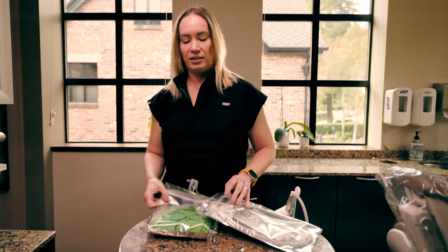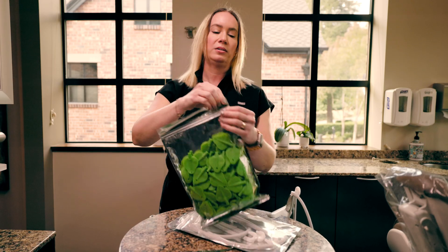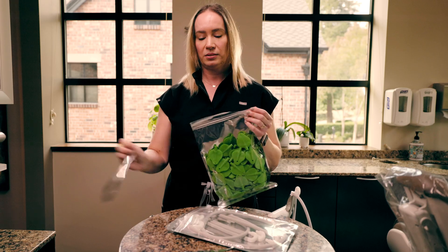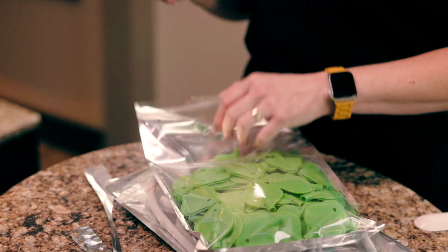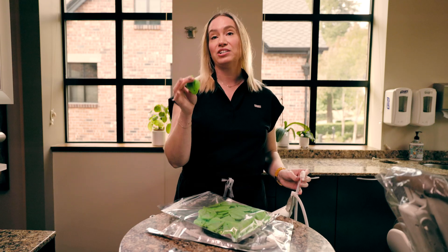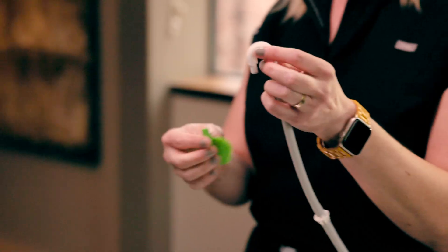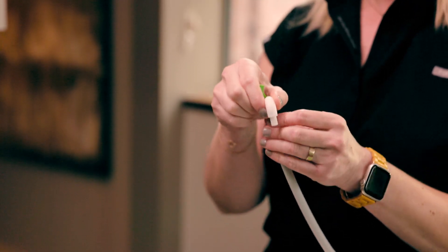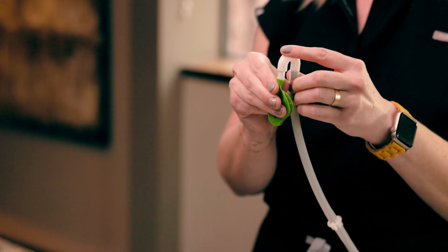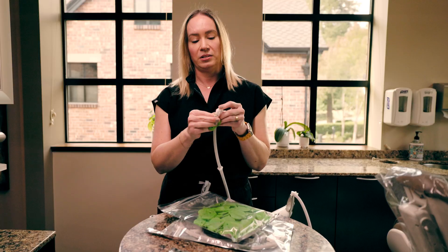The final piece — and this is the single disposable piece. I'm going to open the leaves right here and get one leaf out. Now you're going to attach the single unit leaf to the suction tubing. You're going to have that hole facing out towards you, and then just slide that right on. Make sure it's nice and secure.